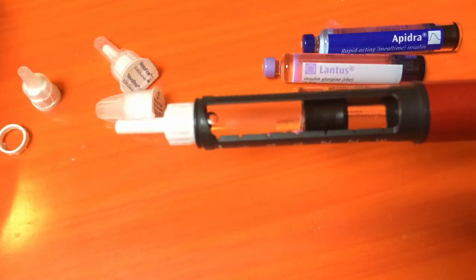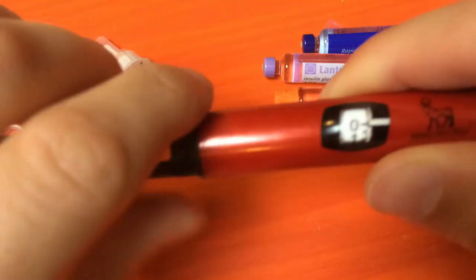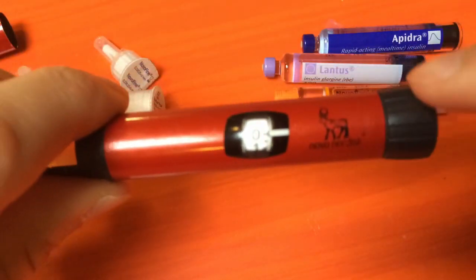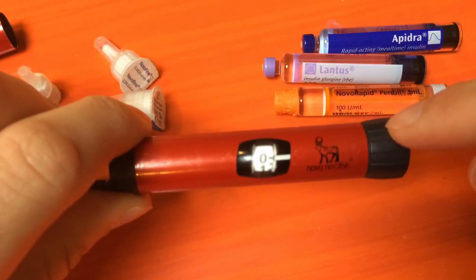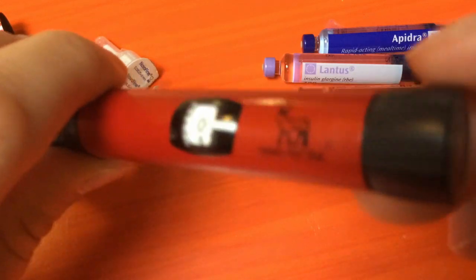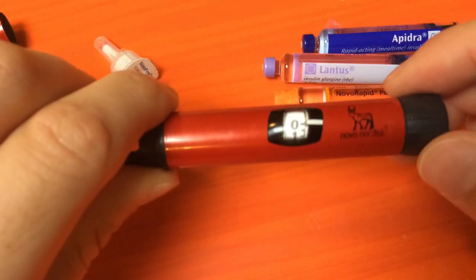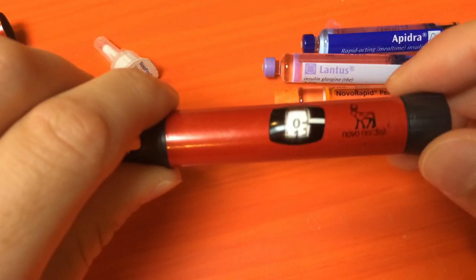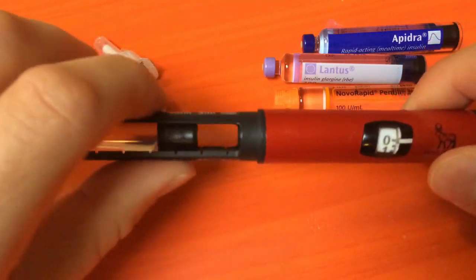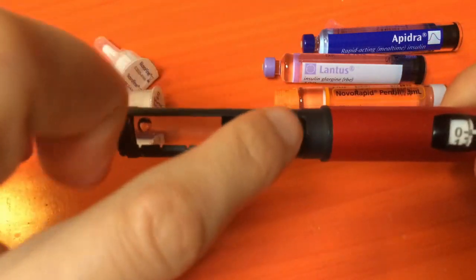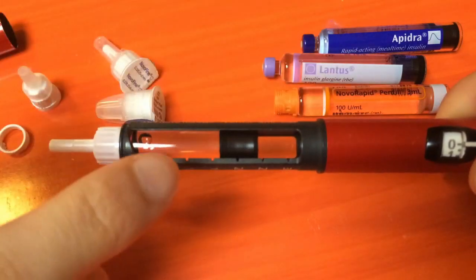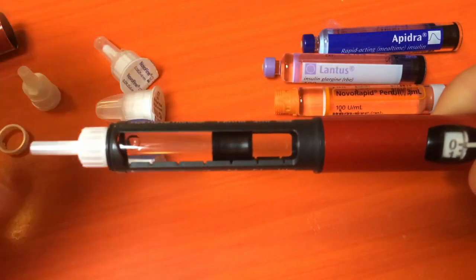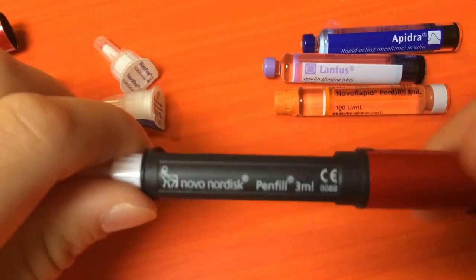I tried putting the vials into the NovoPen because there's no equivalent pen from Sanofi. None of them have digital displays; it's kind of unique to the Novo range. But putting the Apidra vial into the NovoPen doesn't work, as I'll show you.